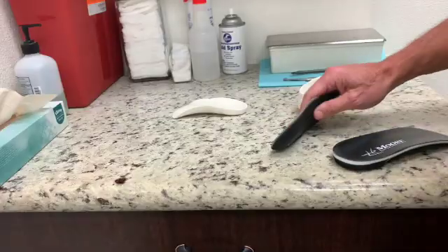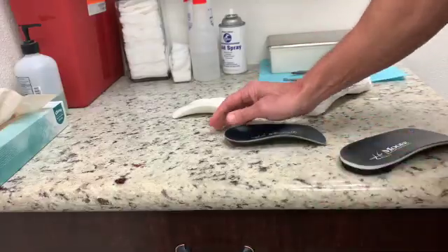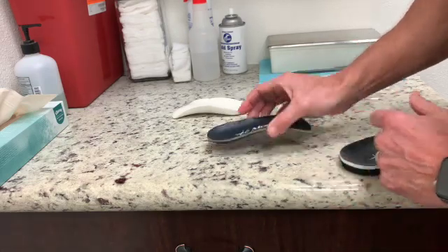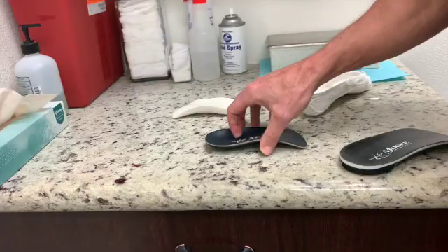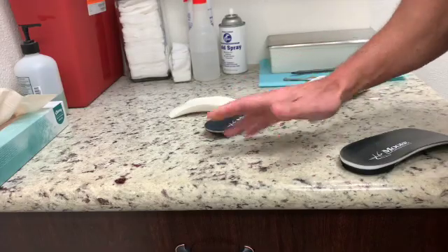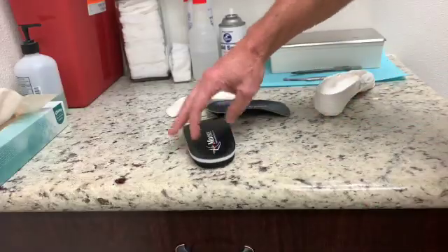Here's a close-up of the devices. They're made of polypropylene — a thermal-molded plastic that is flexible. As you can see, if you put a little weight on it, it'll flex. We can do a shell with a non-skid and with a half device. It will stay in the shoe. If you need a little bit of heel control for people who have flattening or pronated feet, we can put a post in, and this post basically stops the patient from pronating.